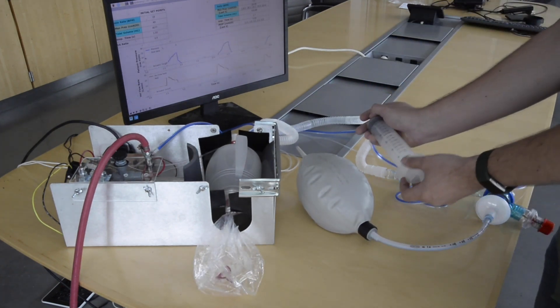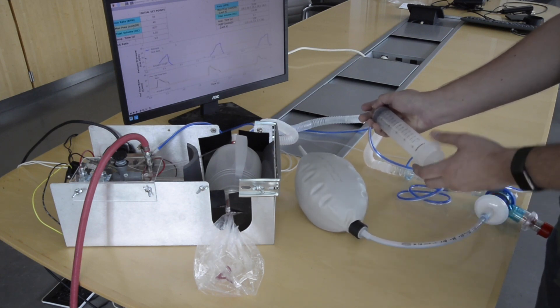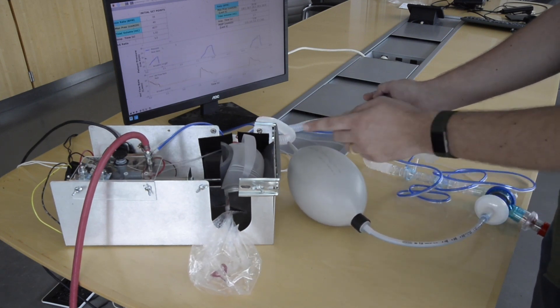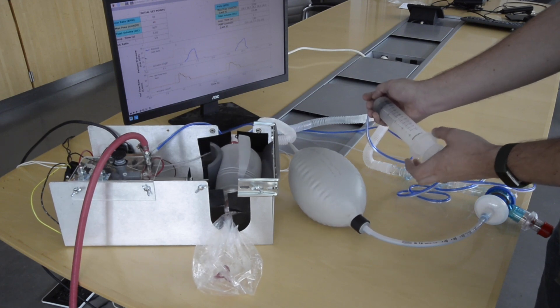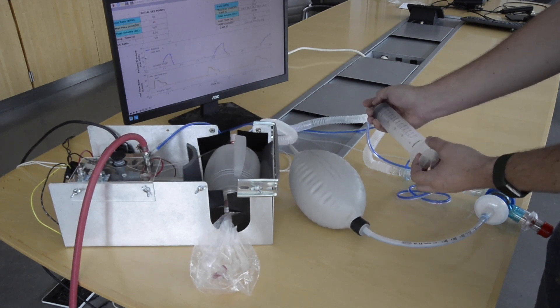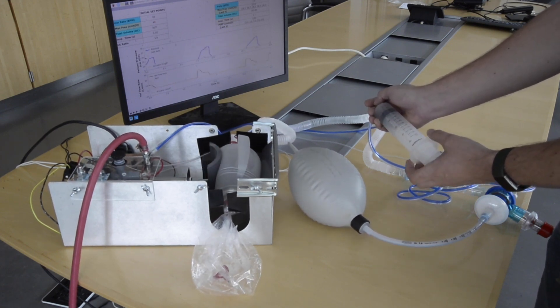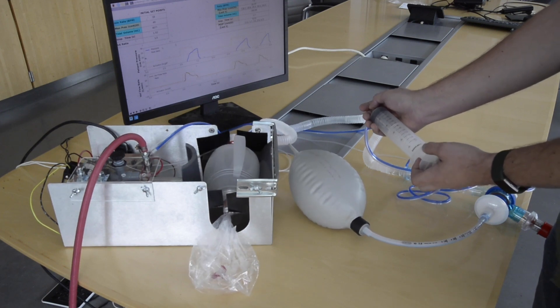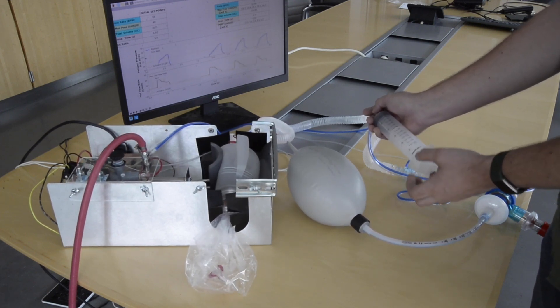But I'm going to simulate patient inspiration by using this syringe. So after the breath, I'm going to trigger a new breath early, and you can see that I can breathe at a faster rate than what the doctor has prescribed as the minimum rate.